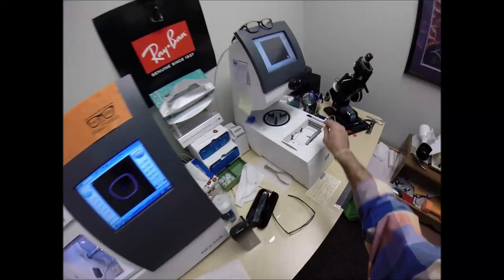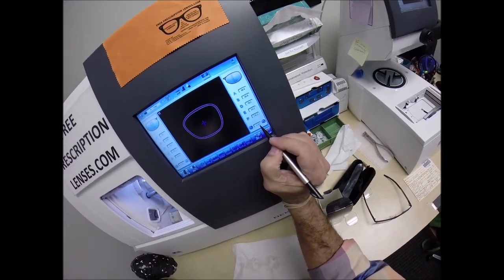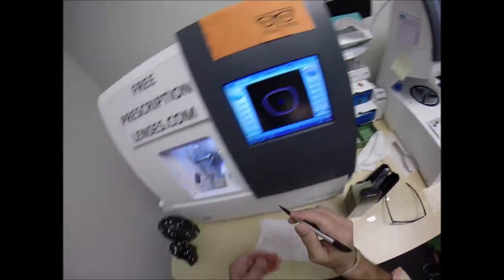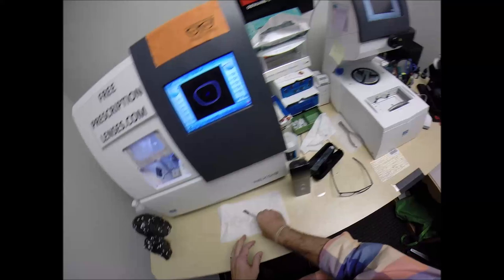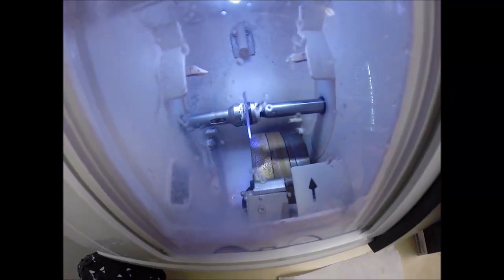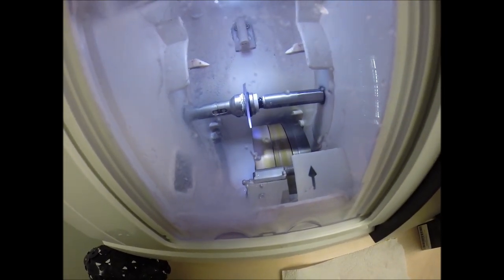So let's take it down a tenth of a millimeter. It goes in. That's one twentieth, one-tenth of a millimeter. Press that back on there firmly. Hit retouch. The door closes. The clamp's going to shut. But this time, it's just going to go straight down onto the bevel wheel.